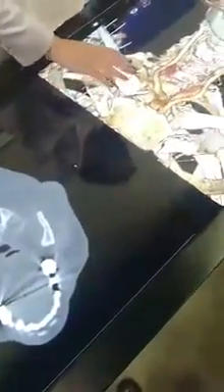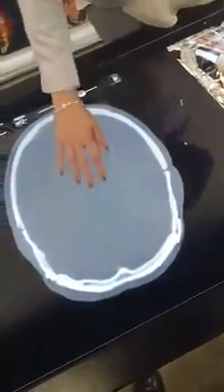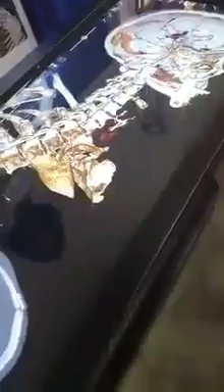Most interestingly, you can load in your own patient's CT or MRI scan and get a 3D model of what you see. Here we have a post-operative CT scan of a patient with a brain aneurysm clip. You can slide through the CT to see exactly where the clips were placed, and make a quick cut into the 3D model to see clip placement more intuitively in 3D rather than just reviewing the flat CT.